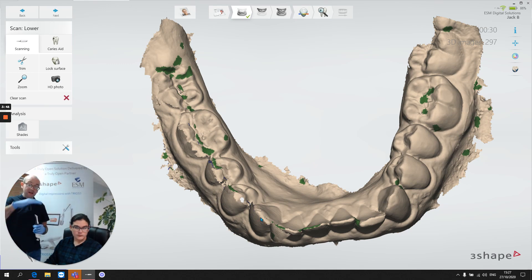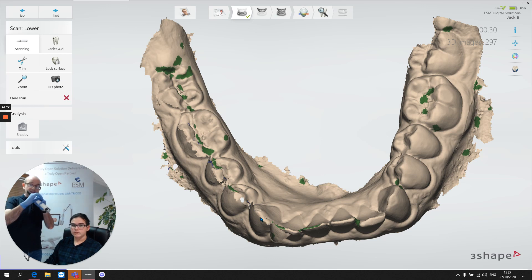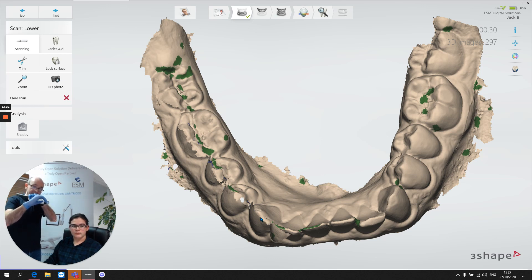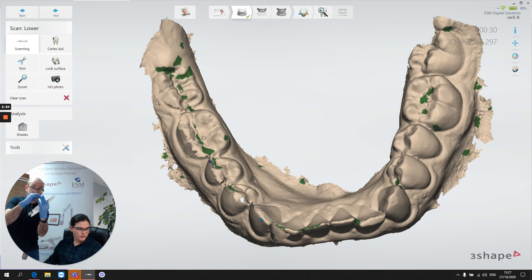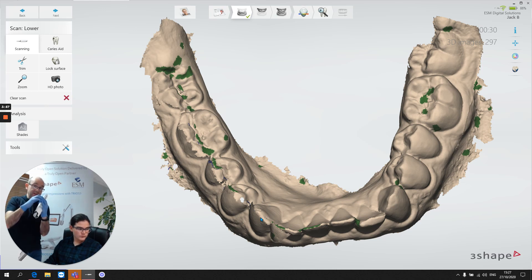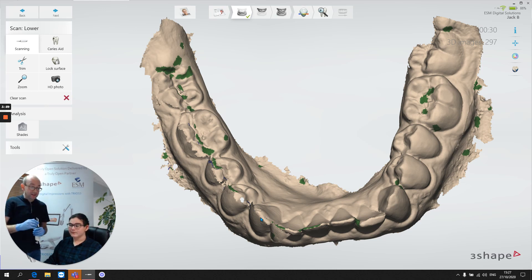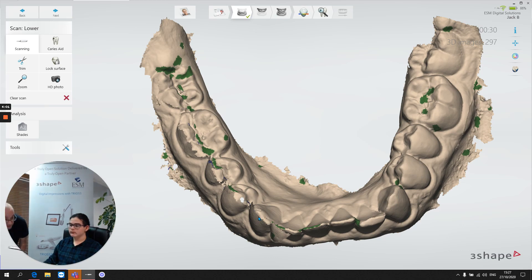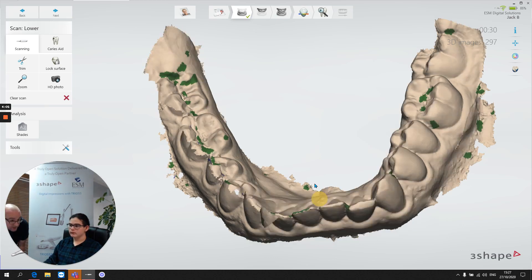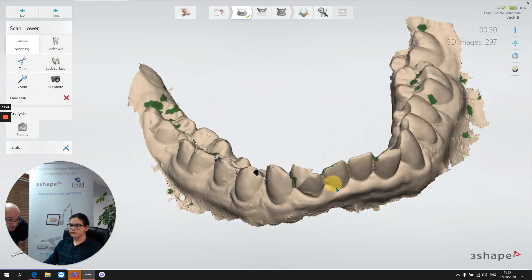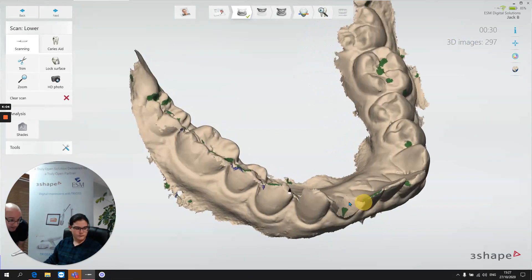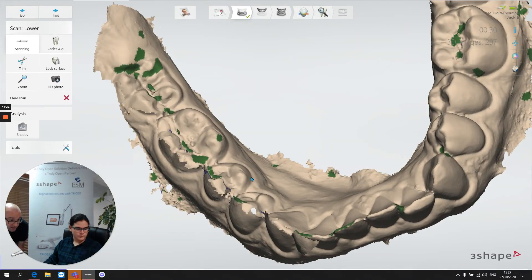When we're scanning, we like for the occlusal surface, a little bit of buccal and a little bit of lingual. So when we come and do the buccal surface, the new scan information has something to stitch onto and similarly on the lingual surface. So the result is if we don't get that occlusal scan done correctly, this is what happens.